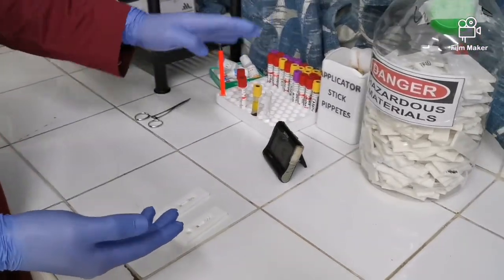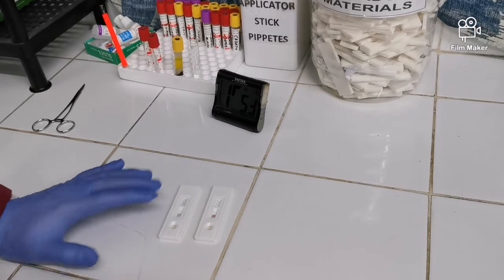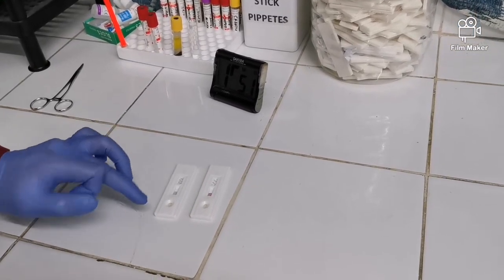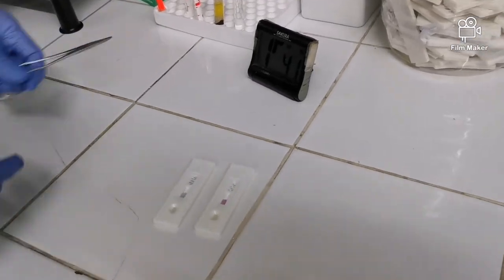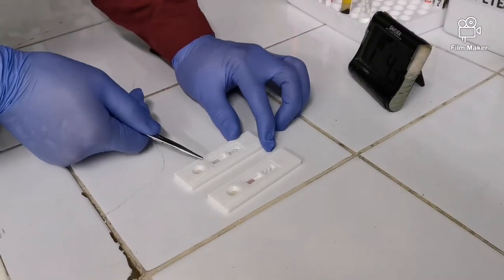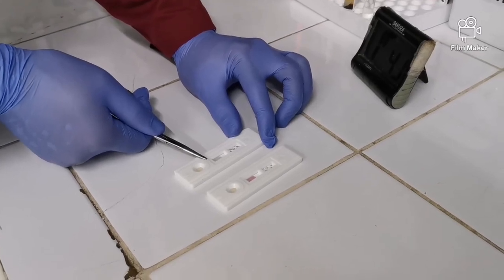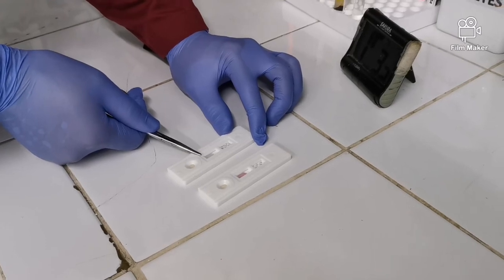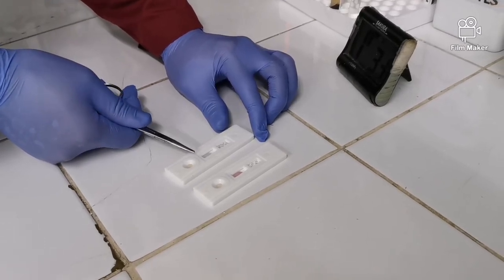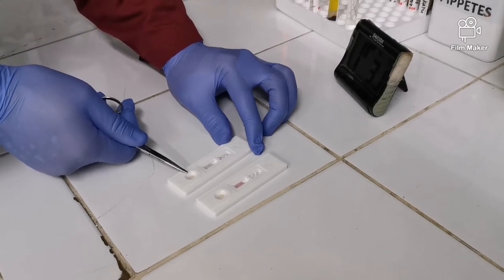Babalikan na lang natin to kapag tutunog na yung timer. So ayun, nakikita nyo parang nagfo-flow na yung specimen, okay? Kasi on this part, meron tayong dye na nandyan, okay? And that dye is antigen tagged na dye or antibody tagged na dye, okay? So anong gagawin ng antibody? So titignan niya yung antigen na nasa ating sample.